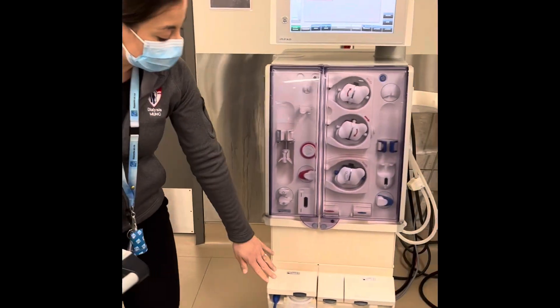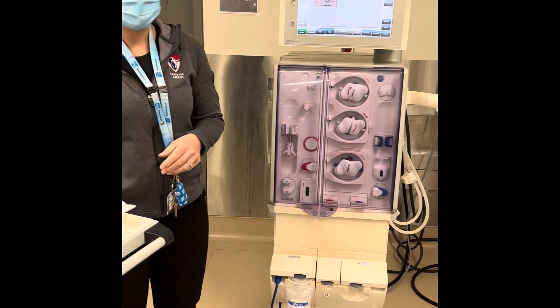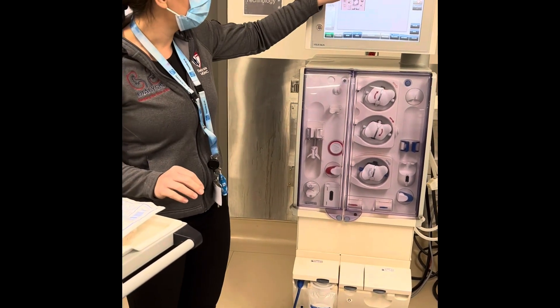Just so that you know, I've already completed the T1 test. The T1 test will need to be completed before we prime our circuit, and if you see here it's in the preparation steps.